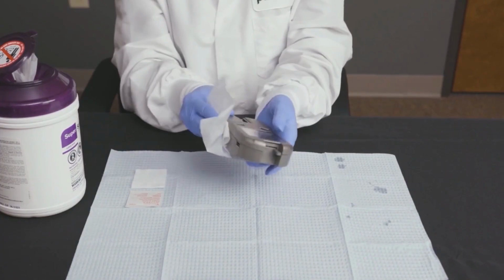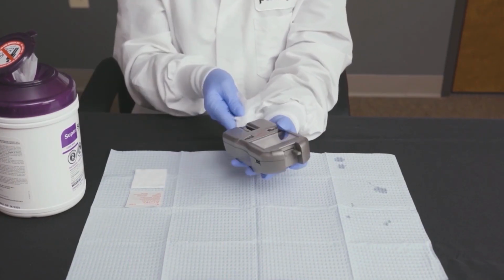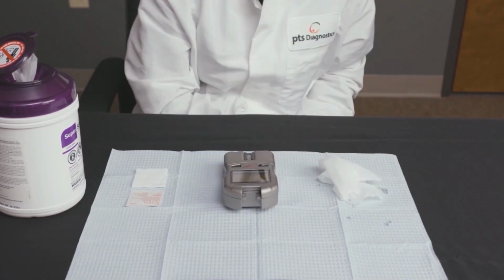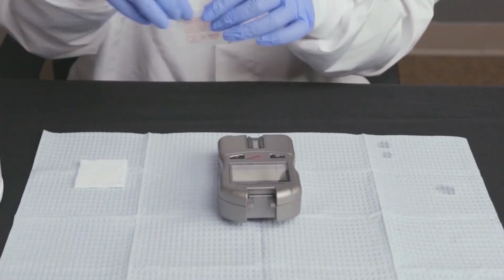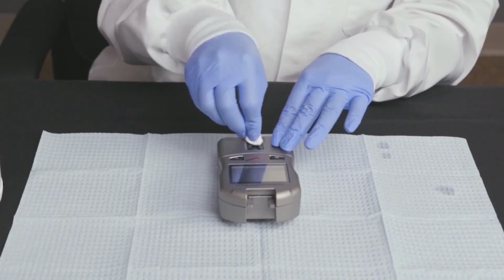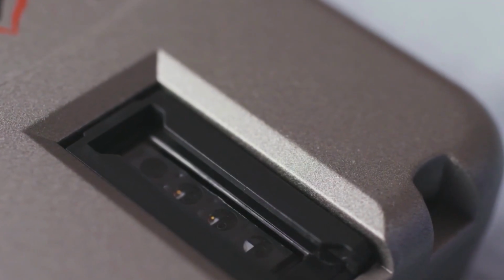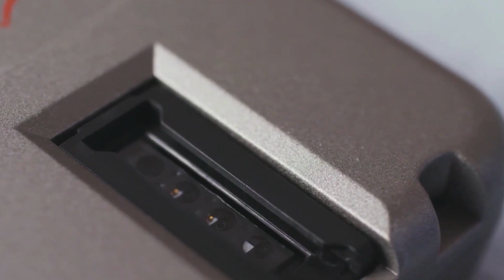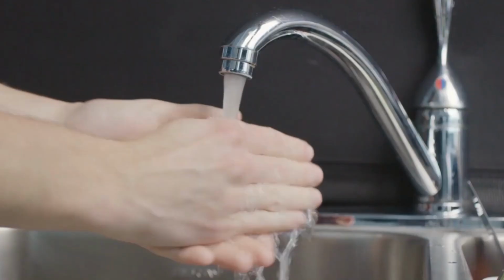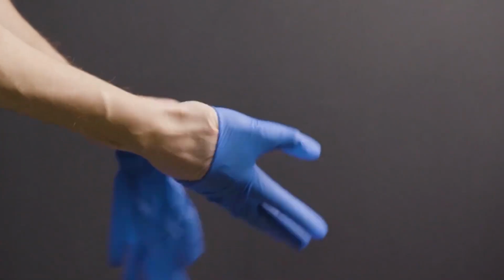Keep the surfaces of the analyzer damp with disinfectant for 2 minutes. This is long enough to kill blood-borne pathogens. Once the necessary disinfectant contact time is up, allow the device to air dry completely. Clean the optical glass with an alcohol wipe to remove any residue left behind by the disinfectant. Dry with gauze. Inspect the optical glass, holding it at different angles to make sure it is clean before running your next test, or before placing the analyzer in the case. Remove your gloves, thoroughly clean your hands, and put on a new pair of gloves before testing the next patient.